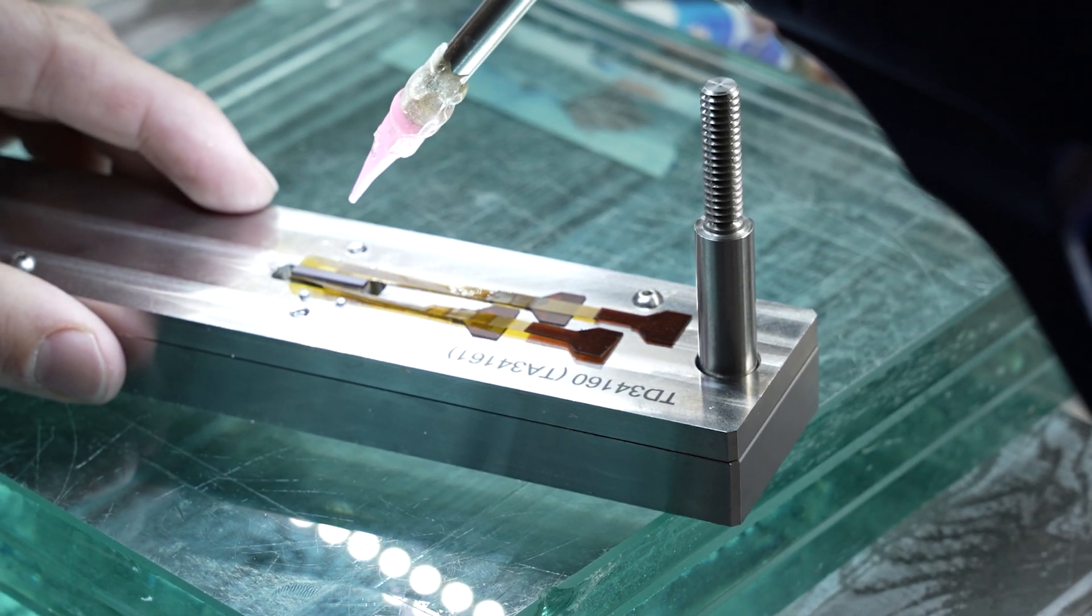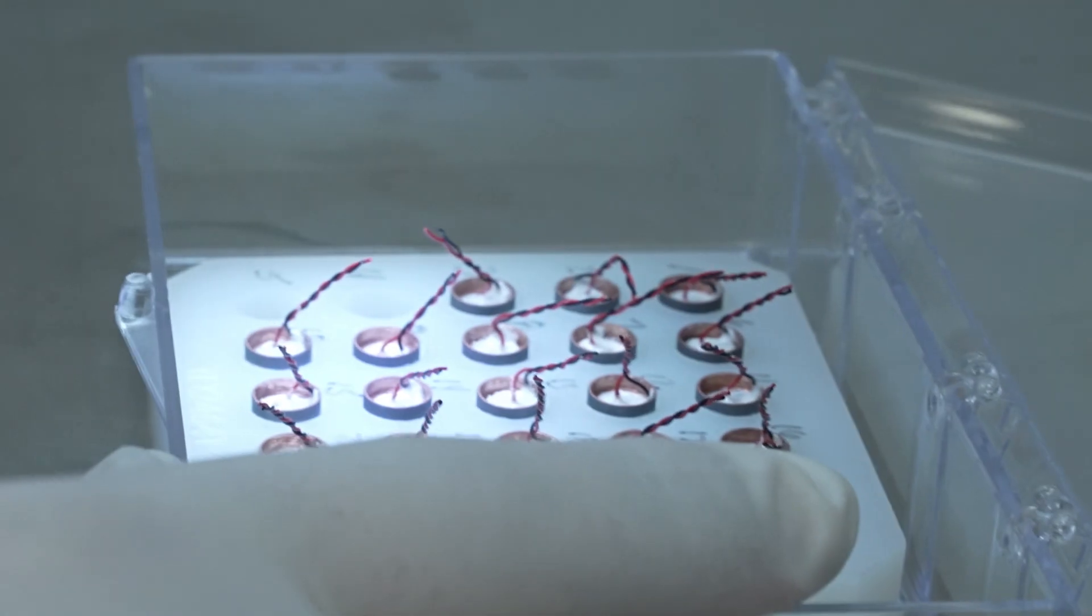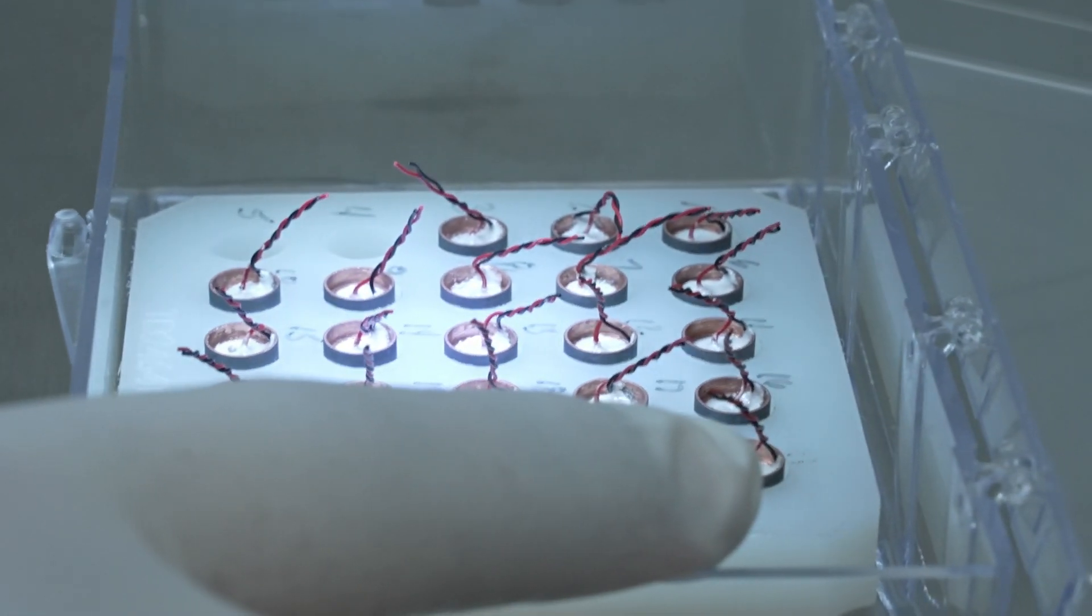From high-intensity focused ultrasound devices and neural stimulators to Doppler and catheter probes, our products are engineered for precision and performance.